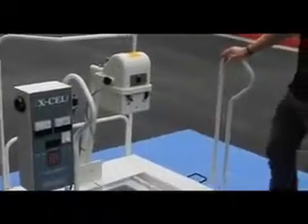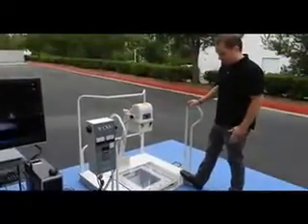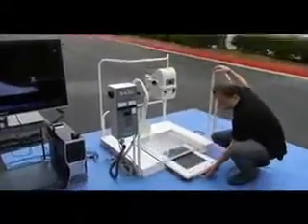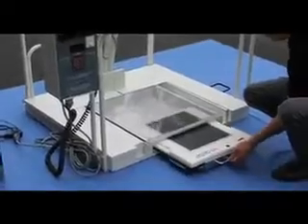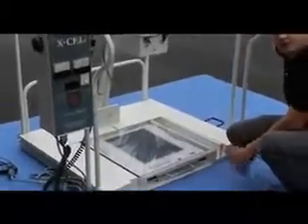This platform meets ADA requirements, so it's a lot lower than the old ones and meets the ADA specifications. This is where the DR can be inserted if you wanted to take PA or AP shots. It gets connected to a computer via USB, and there's a power cord.